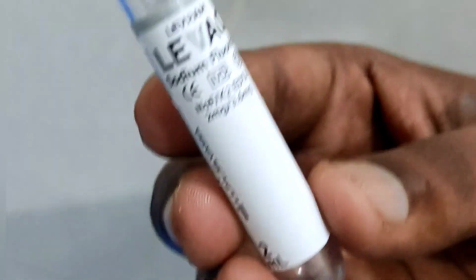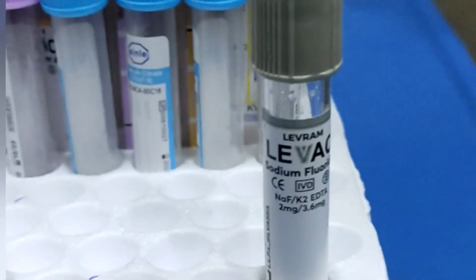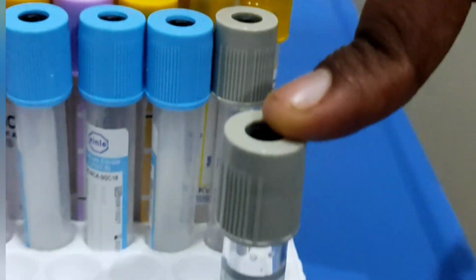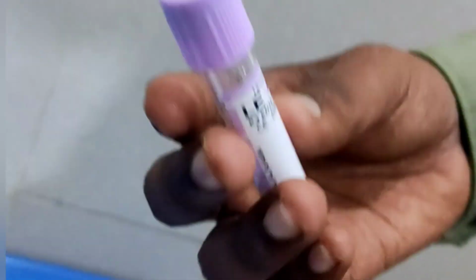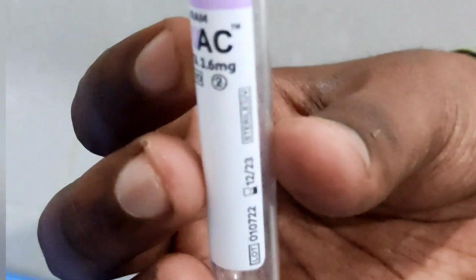Do not reuse blood collection test tubes, and standard precautions for handling infectious agents should be observed while collecting the blood. Wear standard protective clothing such as a lab coat and disposable gloves. And we must wash hands thoroughly before and after the procedure. Tubes and specimens should be discarded as biohazard waste.